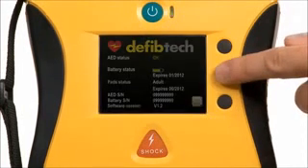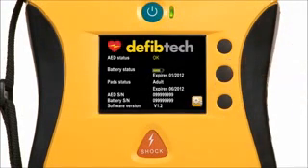Now that I've shown you why the view is so easy to use, let me show you why it's so easy to maintain. An AED always has to be rescue ready. That means making sure the batteries are charged and the pads are up to date. But how do you know they are? Even though the view has long lasting lithium batteries. The view tells you everything you need to know about its rescue readiness on one easy to read, instantly accessible screen. The only AED that does this.